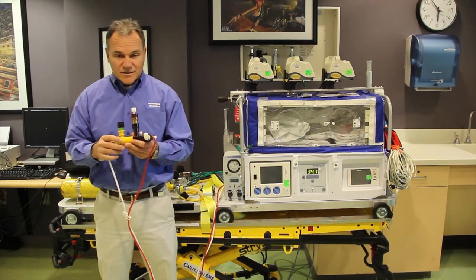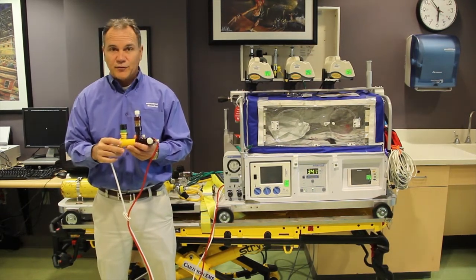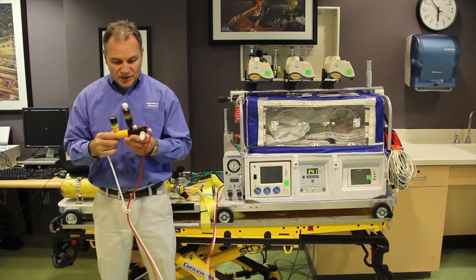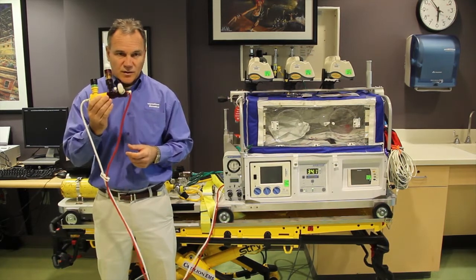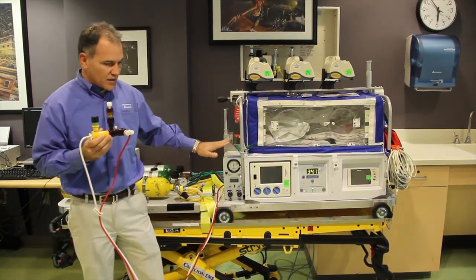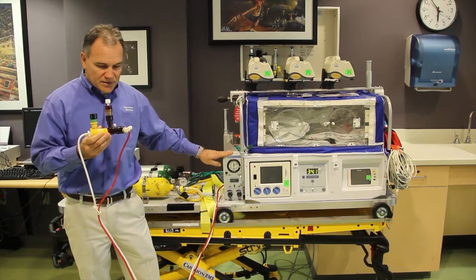My name is Tom Dunn. Today's in-service is on the TXP high-frequency ventilator. What I'm going to start out with is the Phasetron. This is the Phasetron and this is the actual TXP ventilator itself.